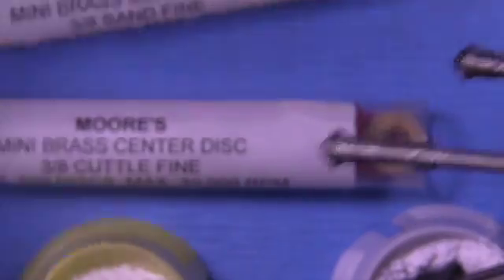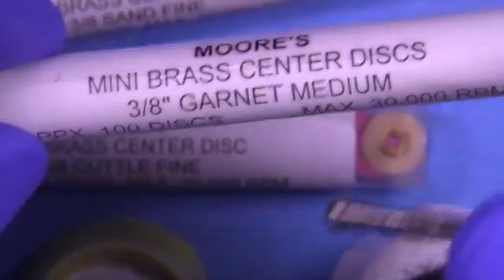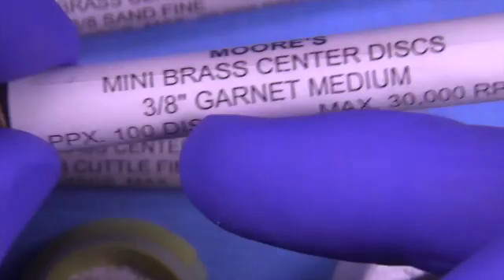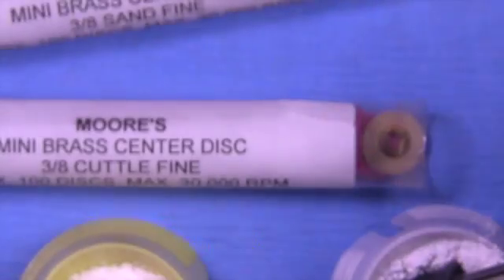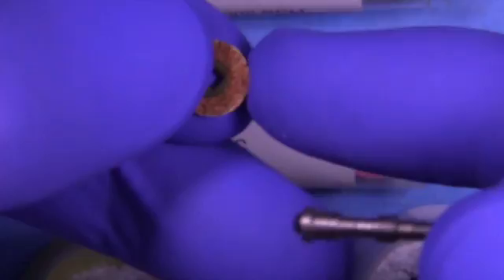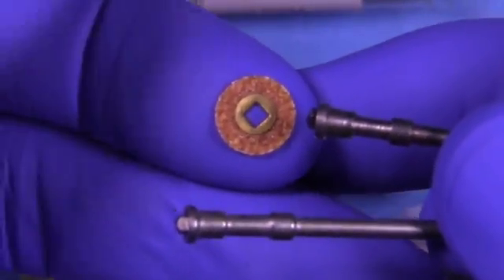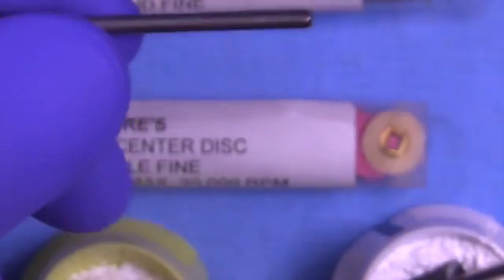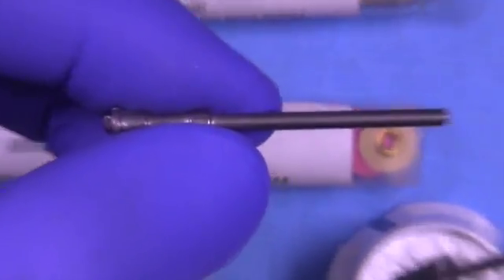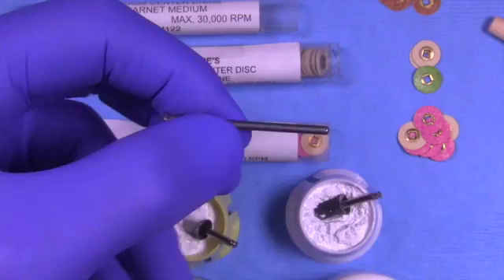We utilize a mandrel made by Moore's that has a latch and a straight handpiece. These have a mini mandrel that uses a snap type of expanding end that grabs onto the disc. These are the medium garnet, the first discs we would use.